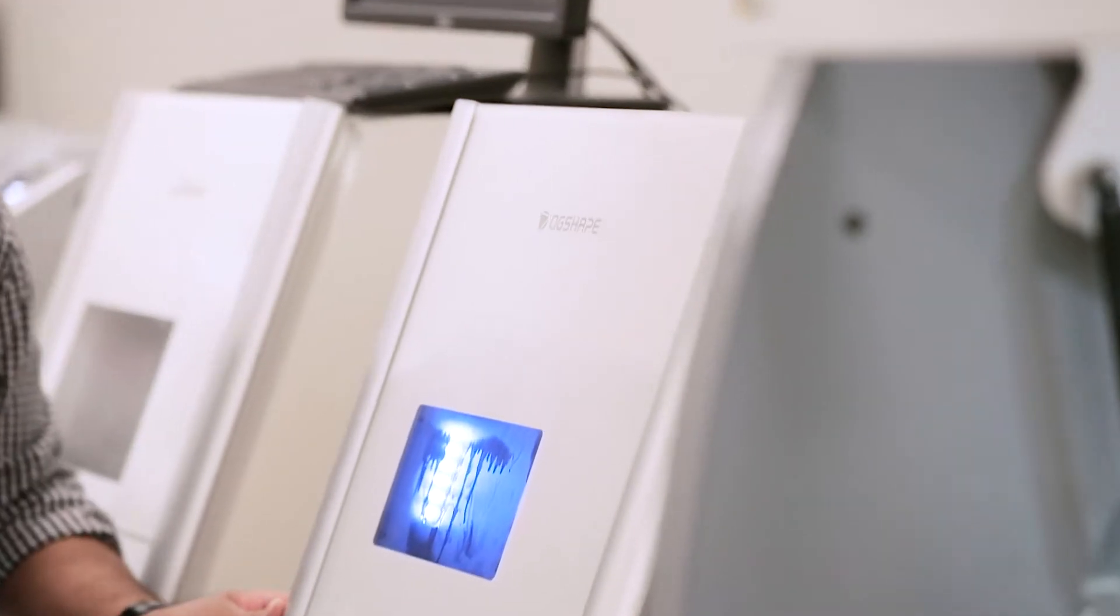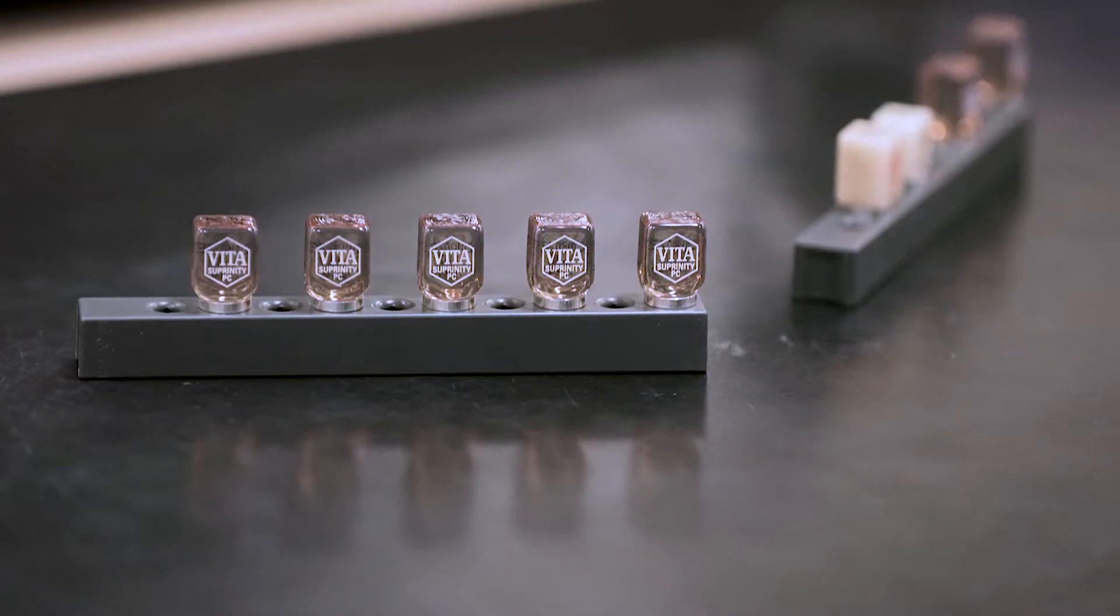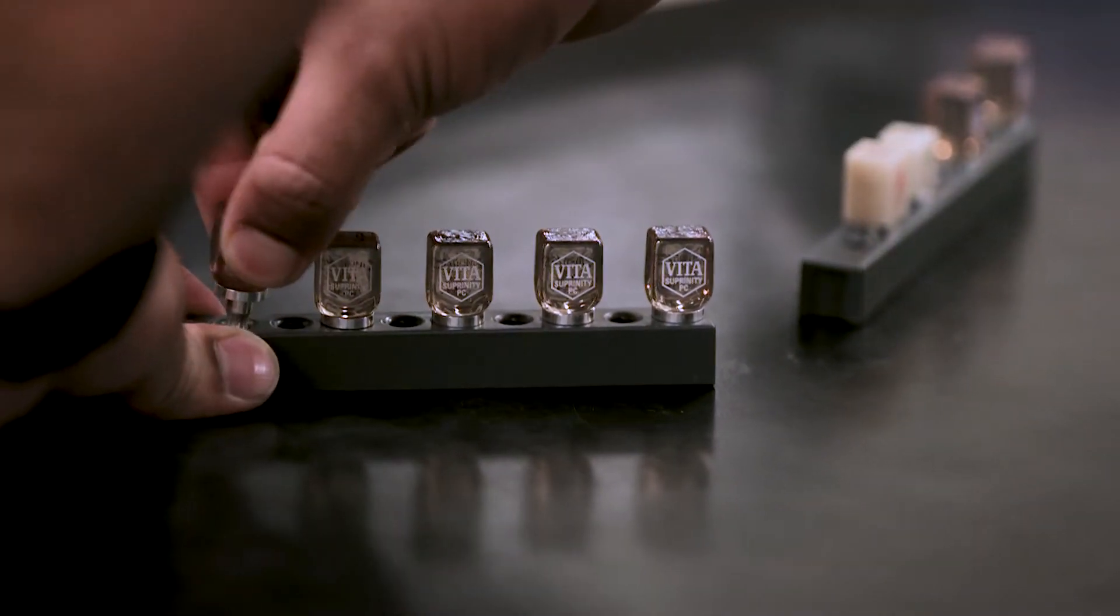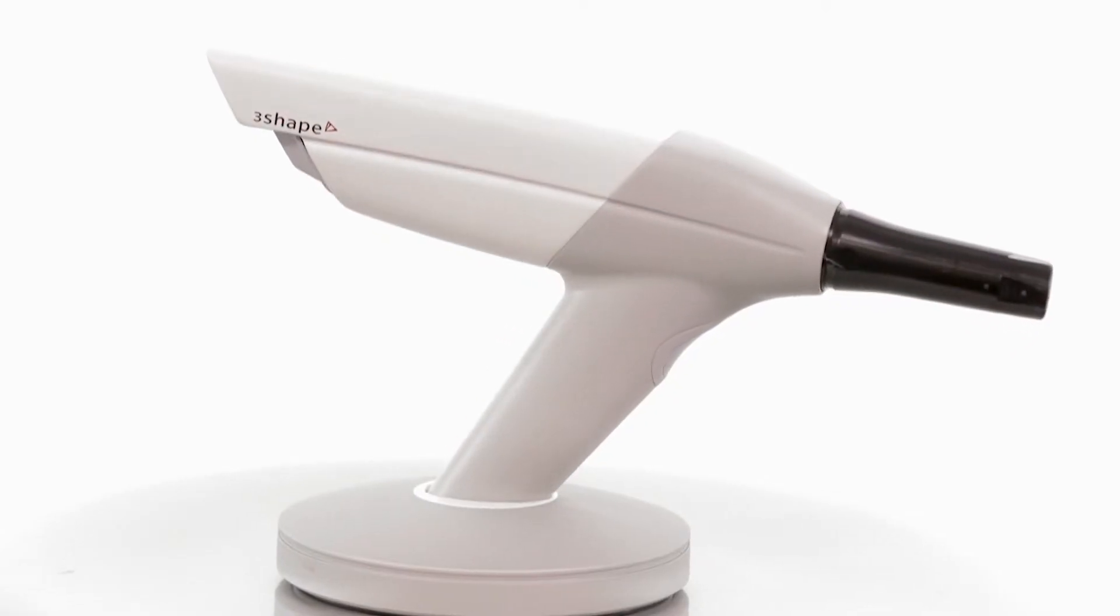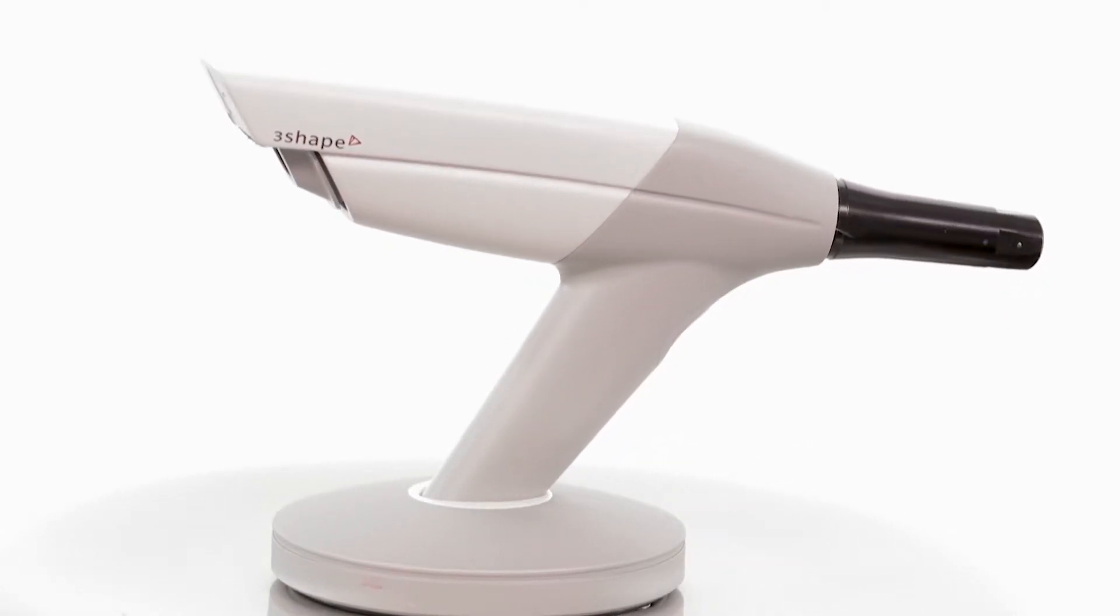One of the most important parts for us is the trusted connection between DG Shape and our other trusted digital dentistry providers so that we can use the technology on a day-to-day basis and rely on it.